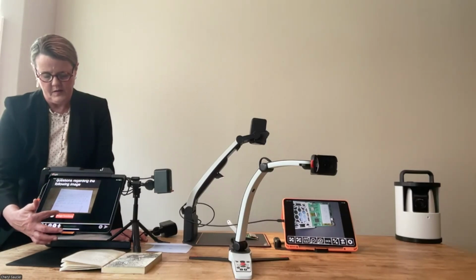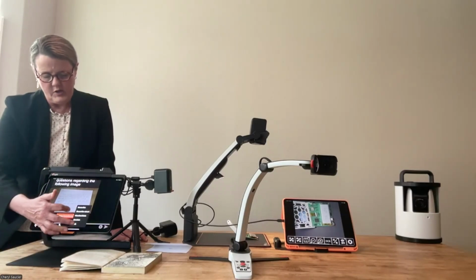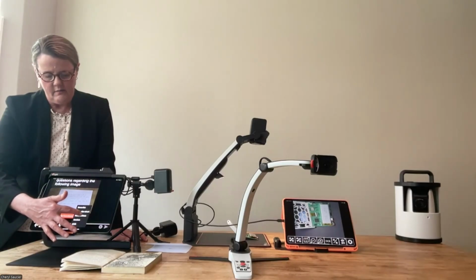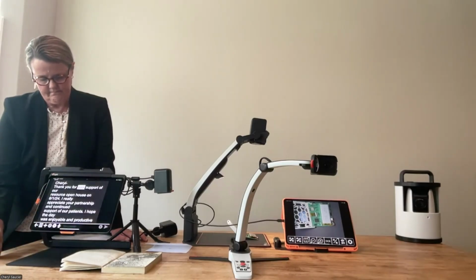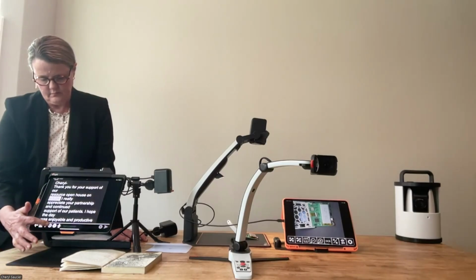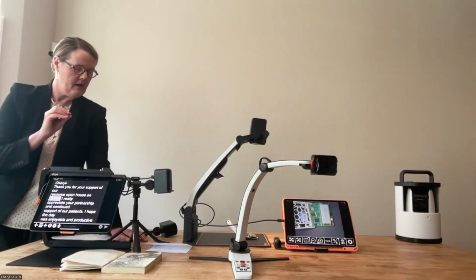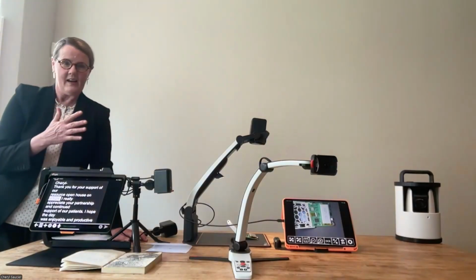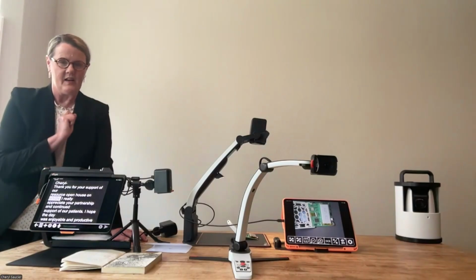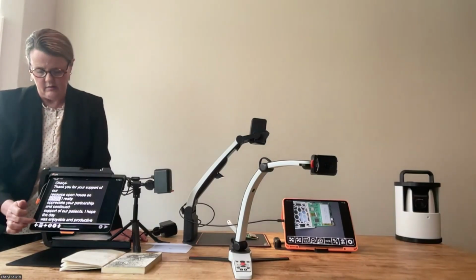I'm going to hit this button that says image functions, and I'm going to hit handwritten, and let's see what it does. "Cheryl, thank you for your support of our resource open house on the 6th of January 2024." So super fast, it captured that handwriting. This is actually a doctor, and he's a great guy, great doctor, maybe doesn't have the neatest handwriting, and it captured it and is accurately reading that handwriting out loud.